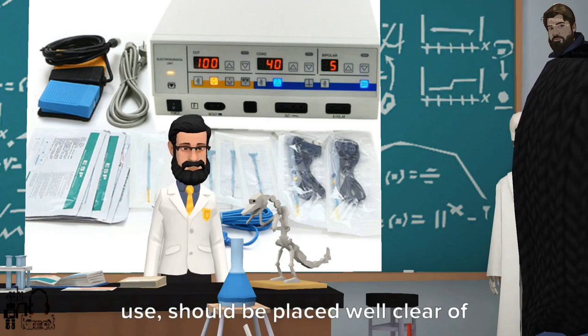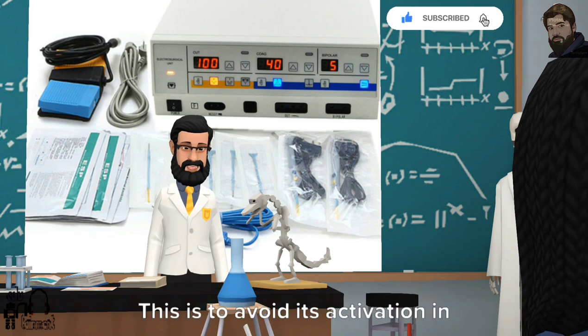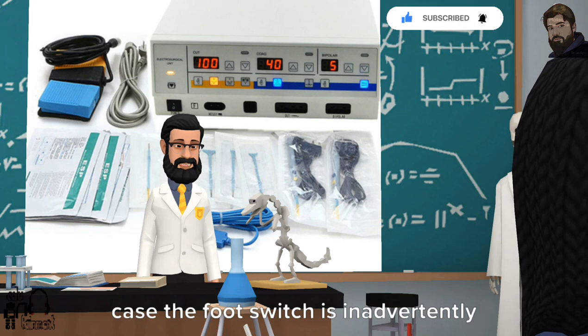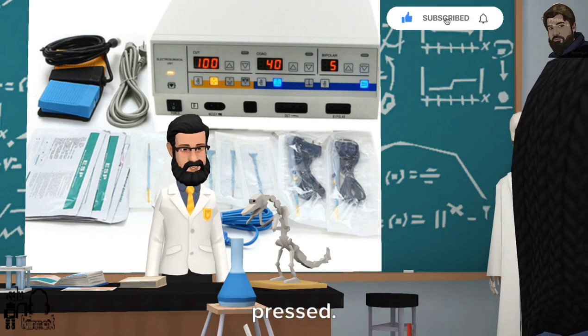9. The active electrode, when not in use, should be placed well clear of the patient. This is to avoid its activation in case the foot switch is inadvertently pressed.